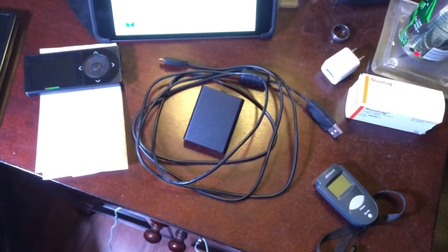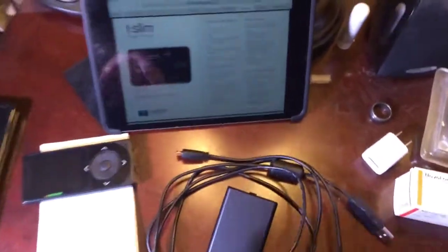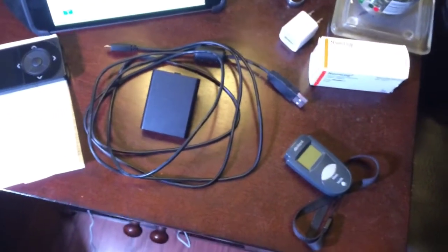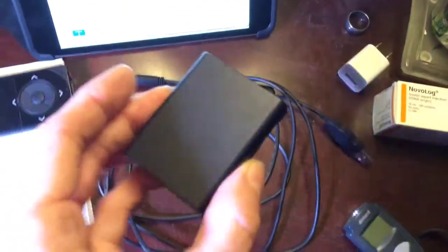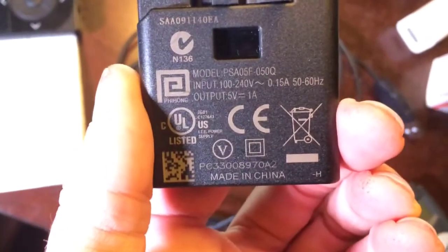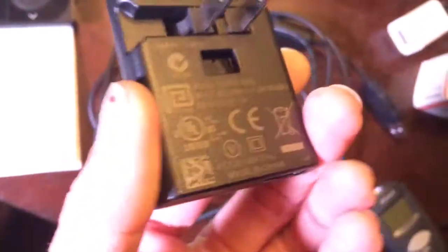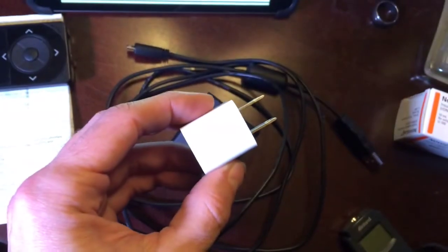I'm going to charge it before the pump turns off — that's a no-brainer. In the meantime, I've charged it with a few different items. This is T-Slim's own charger that it came with. On T-Slim's own charger you can see it is a 5-volt, 1-amp USB. So that tells me 5 volts at 1 amp. I'm also safe to charge it with my iPhone chargers as well.